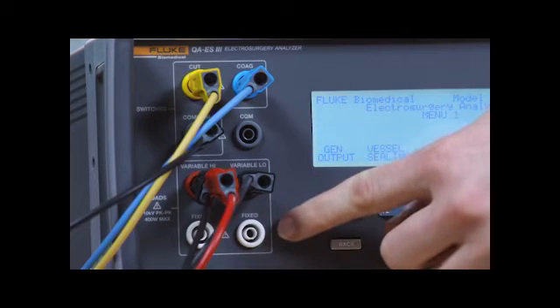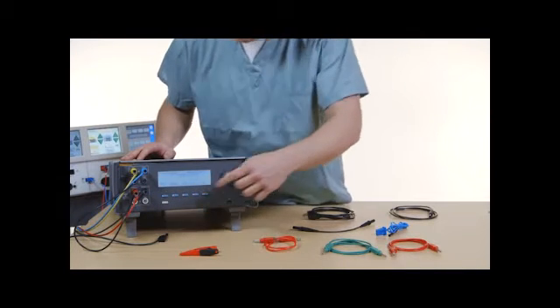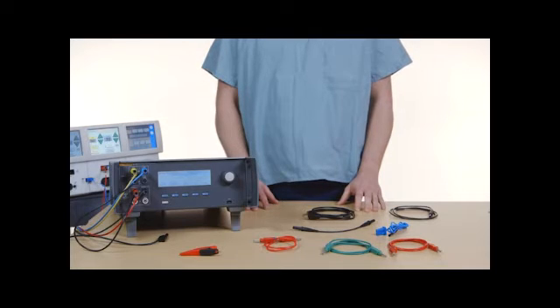Some measurements also use the fixed 200 ohm load at the 200 ohm jacks. The bipolar leakage measurement uses an additional internal 200 ohm load to earth that gets switched into the circuit.